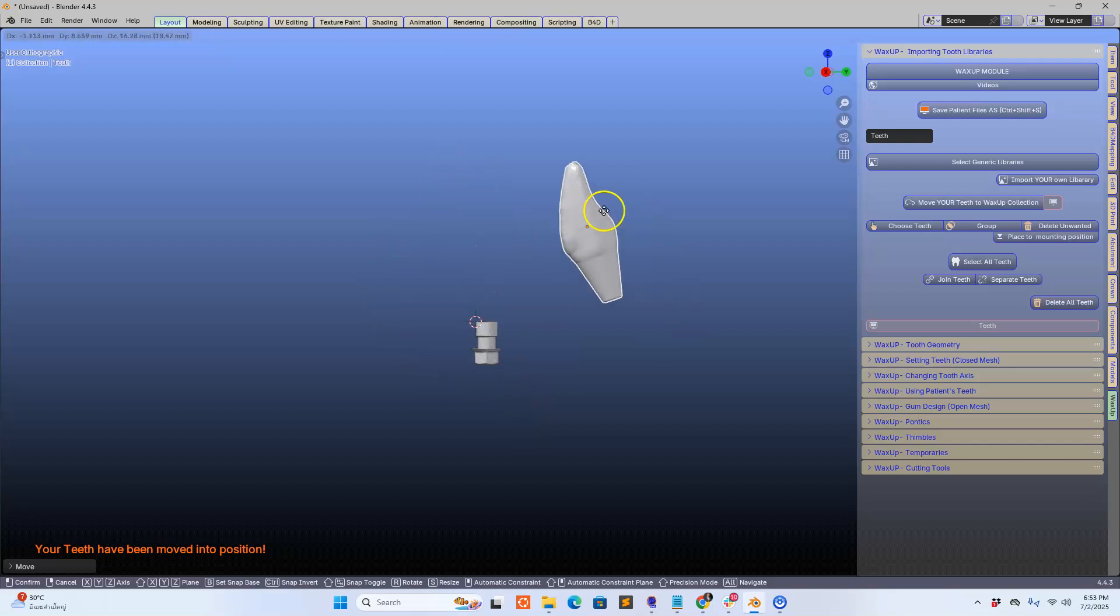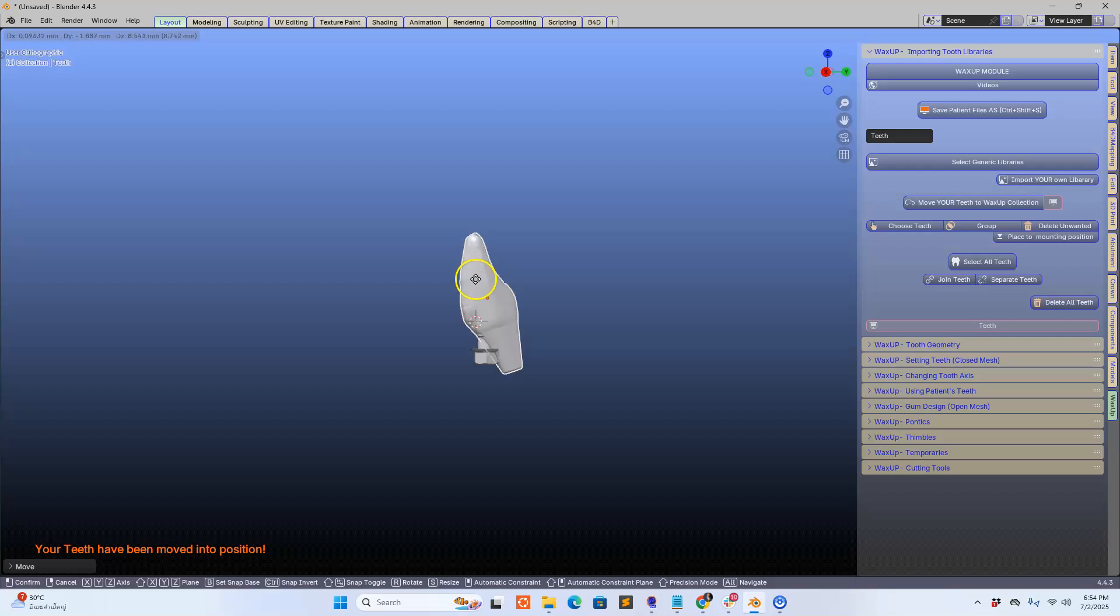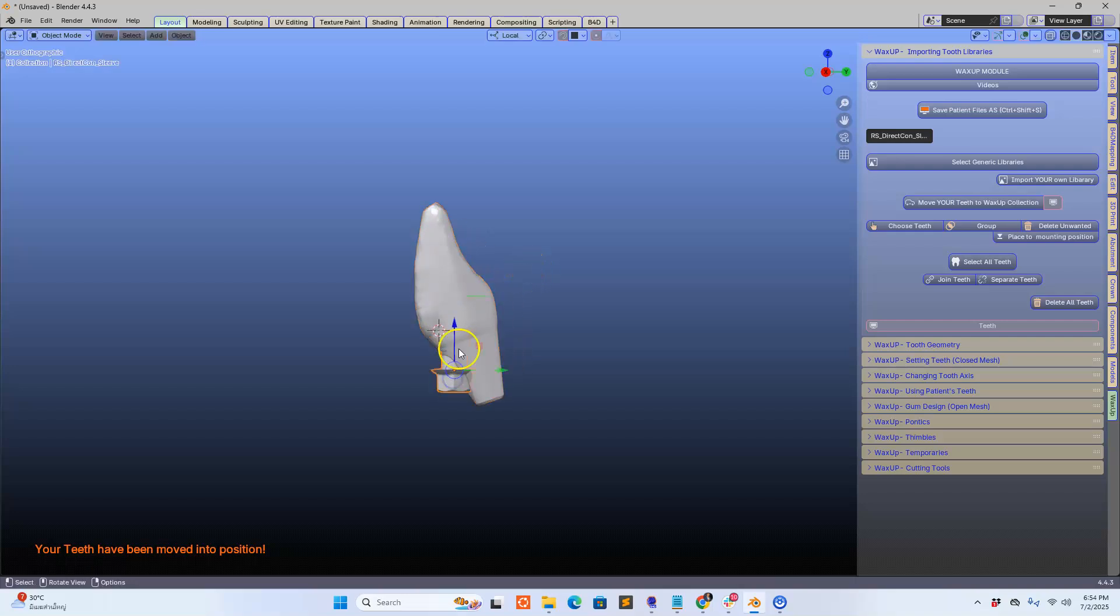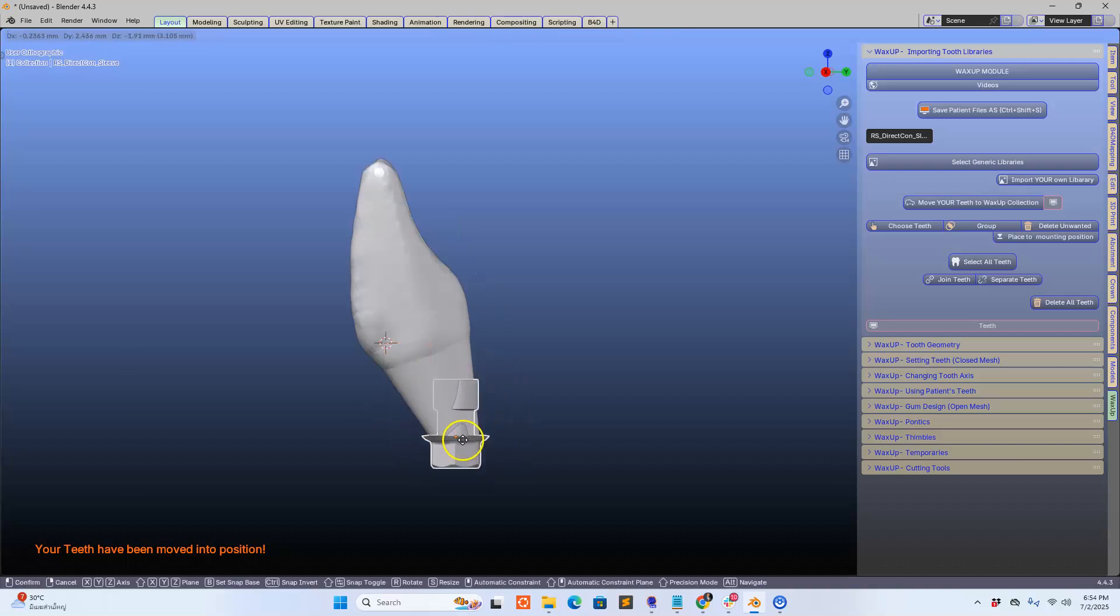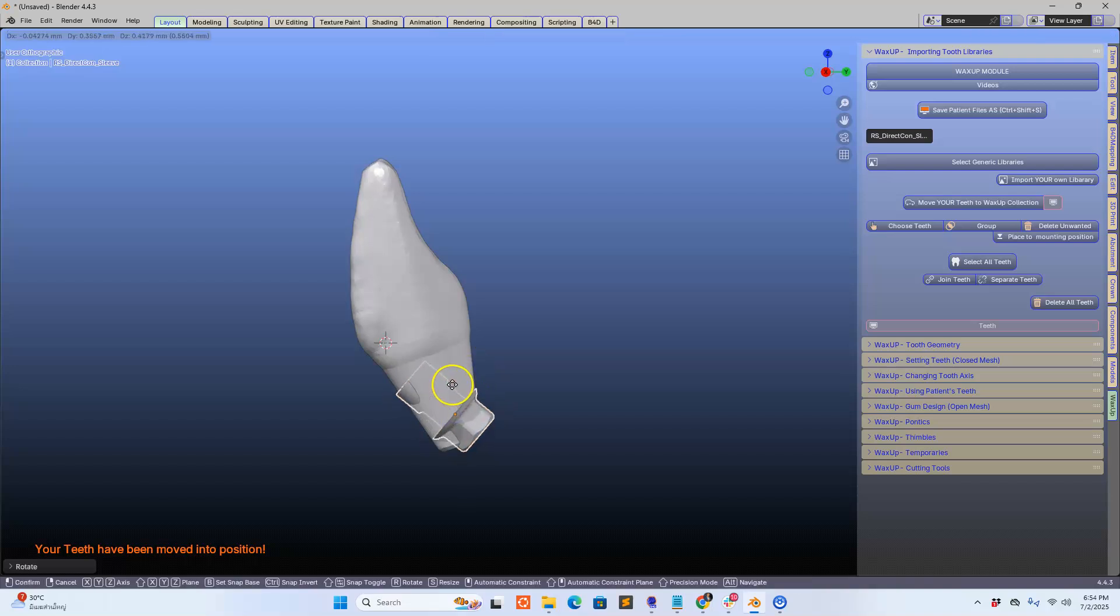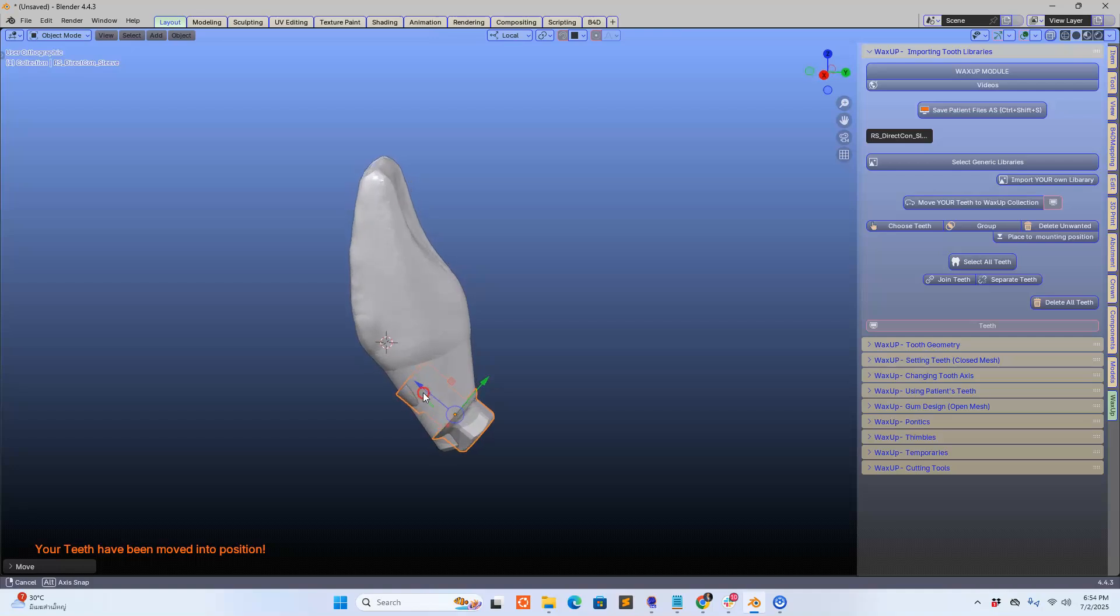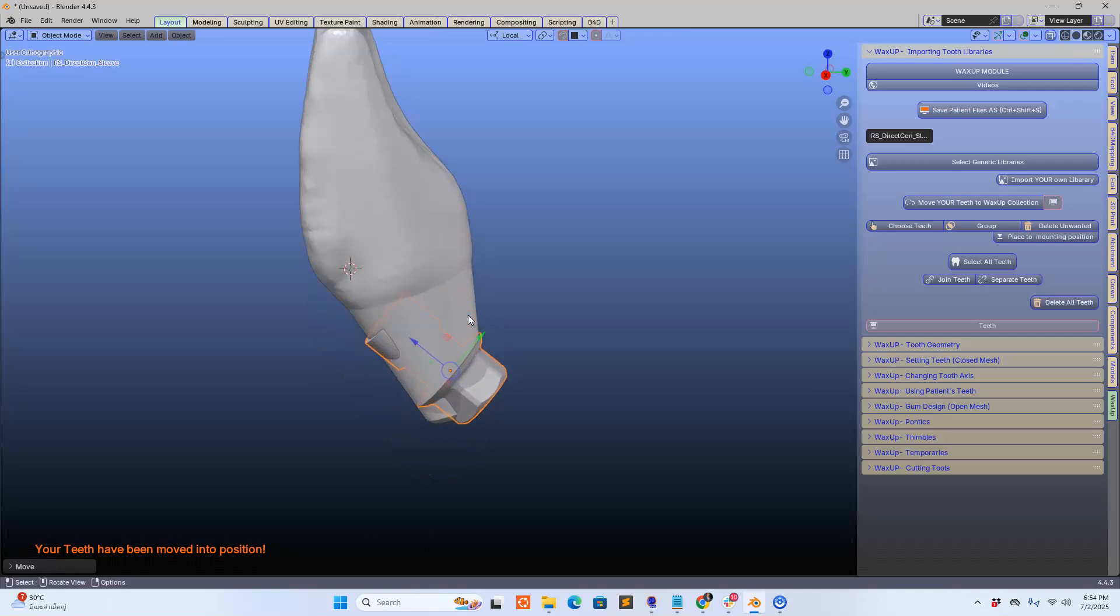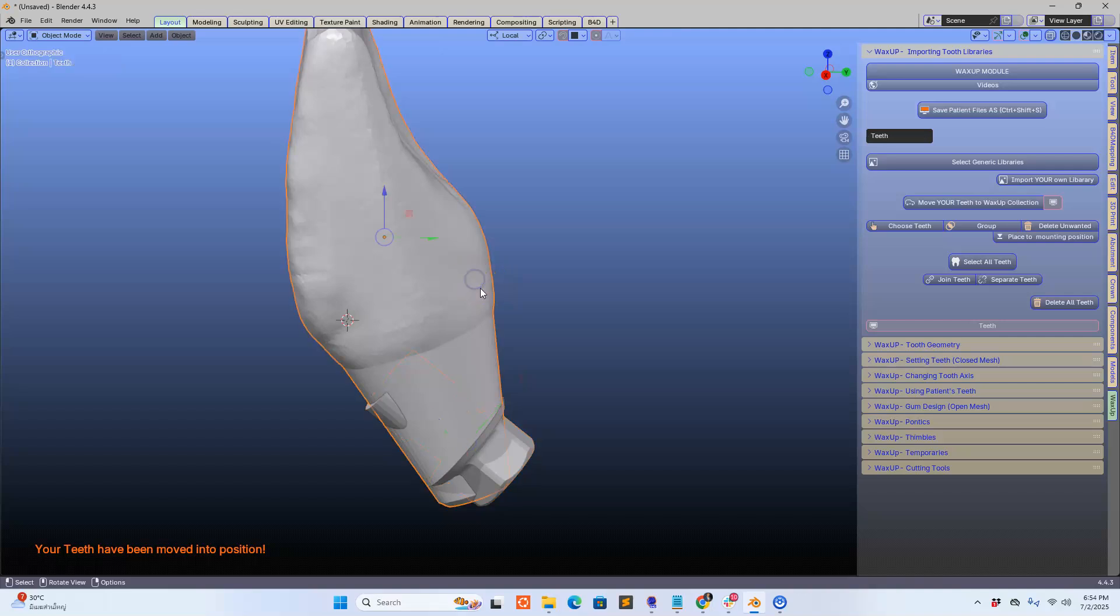Position it and we're going to move this into a semi-complicated scenario. So just say you've got a tooth over here, in the mouth it would probably be at an angle like that, but this implant I'm going to purposefully misalign. Let's make it a ridiculous angle. Not that clinically it would probably not be the case, but because we're making a custom abutment I want to make it a little bit difficult.